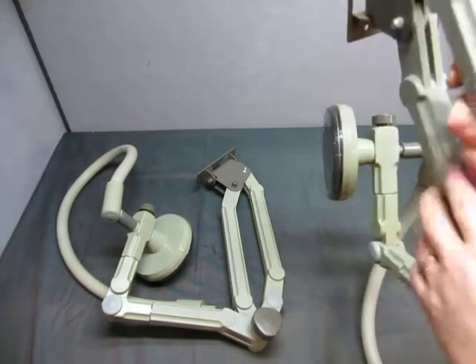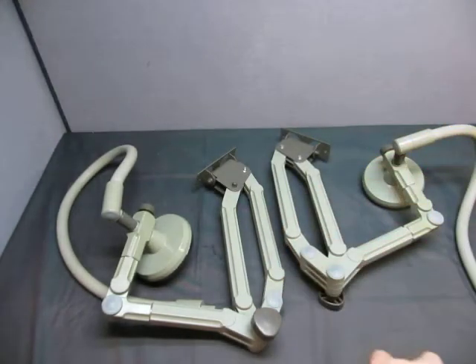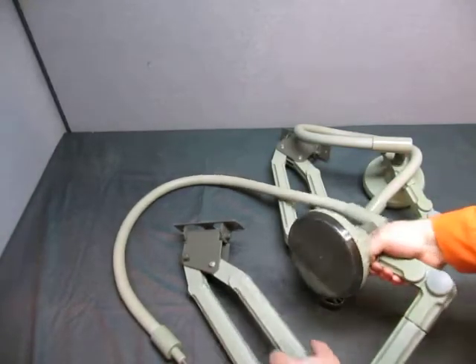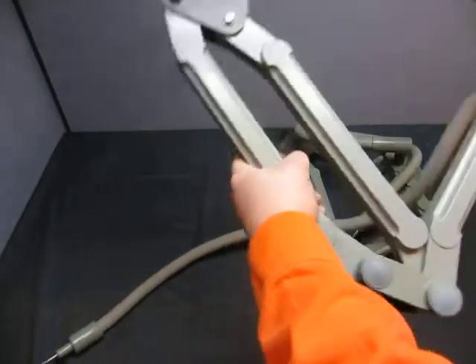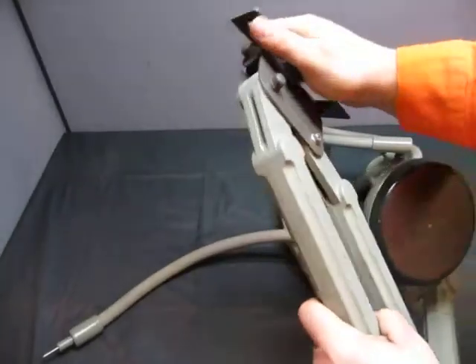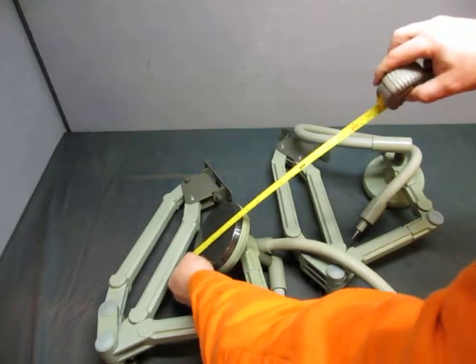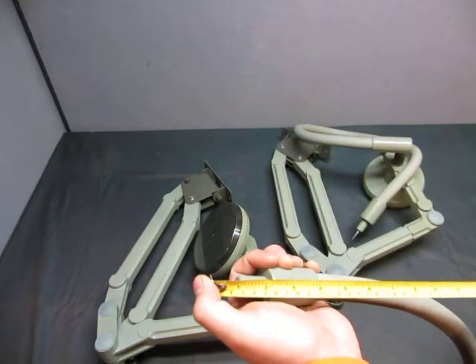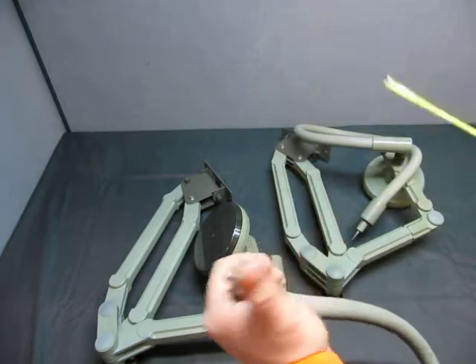It's attached to something, so I don't know what it's supposed to be attached to. There's no information on these — nice if people gave me information so I could at least know what it is. They're for some type of physio unit is my guess — it's gas. Everything moves. The pads are about five and three quarters inches in diameter, the pin here is about an inch long and five millimeters wide.